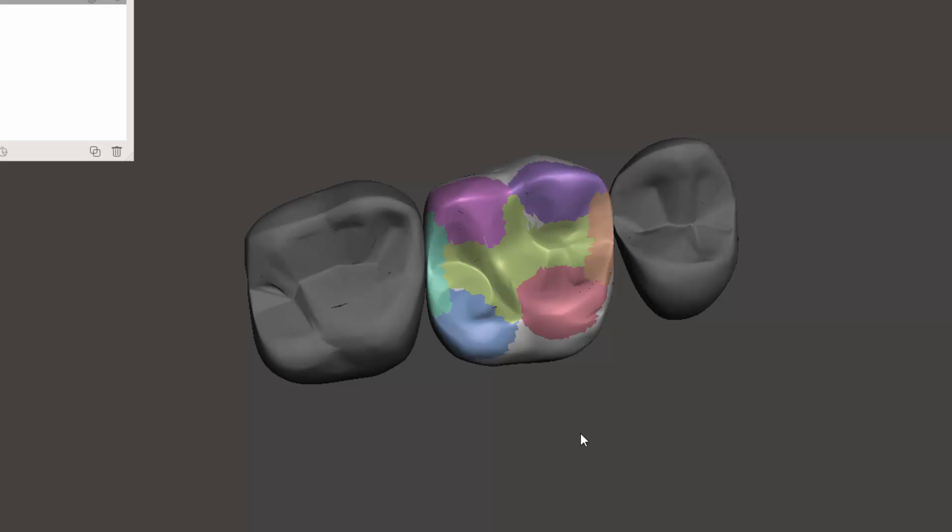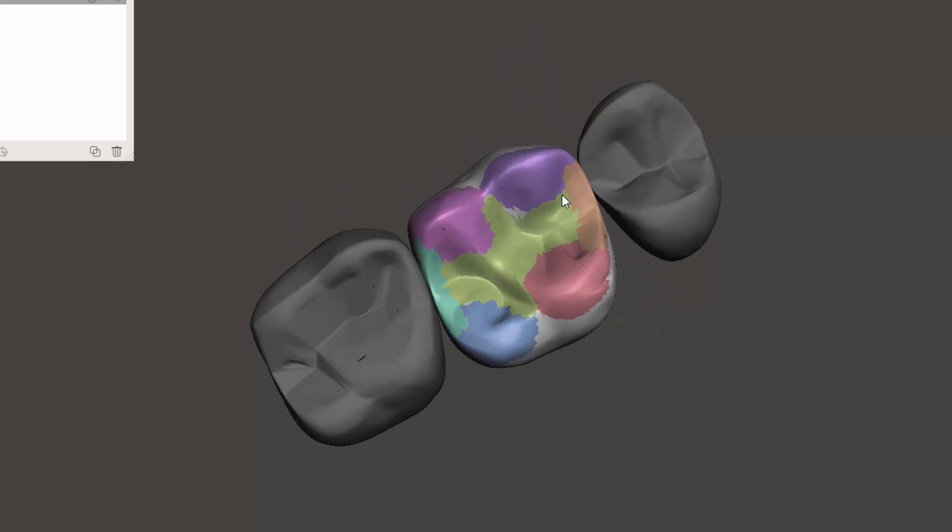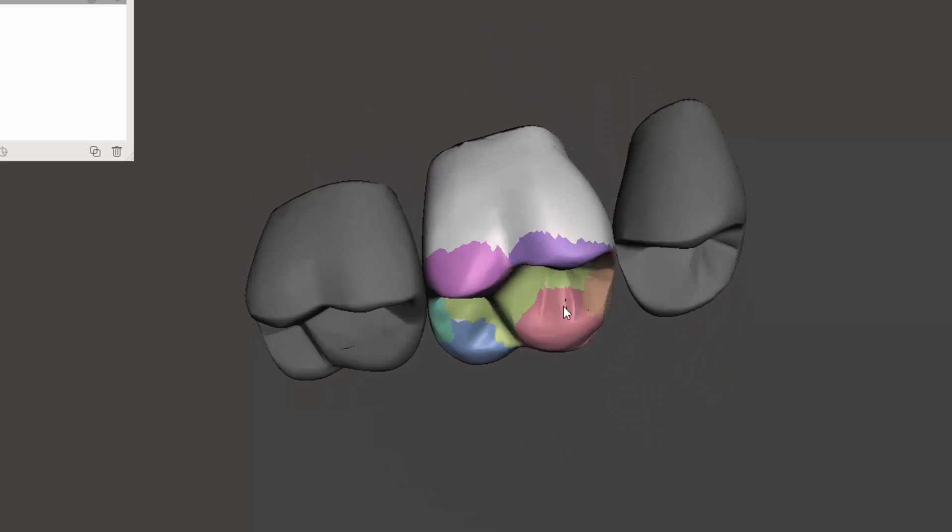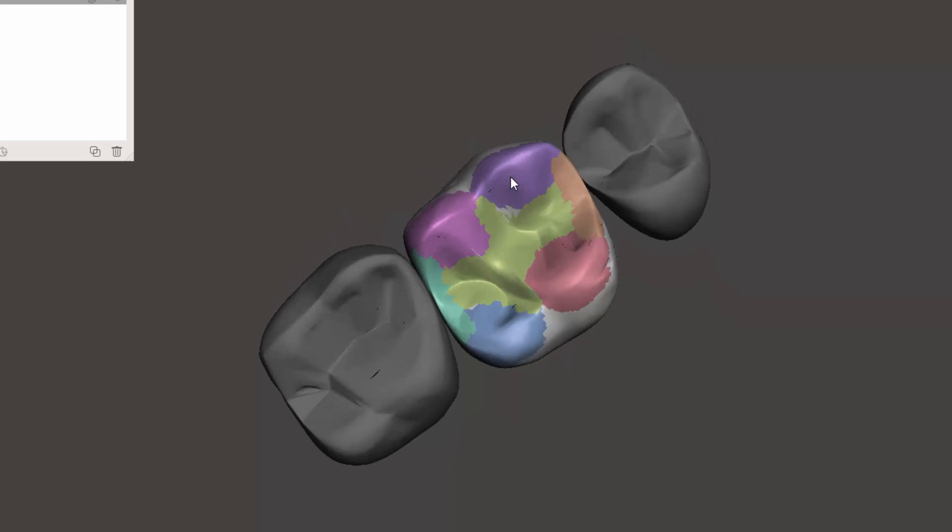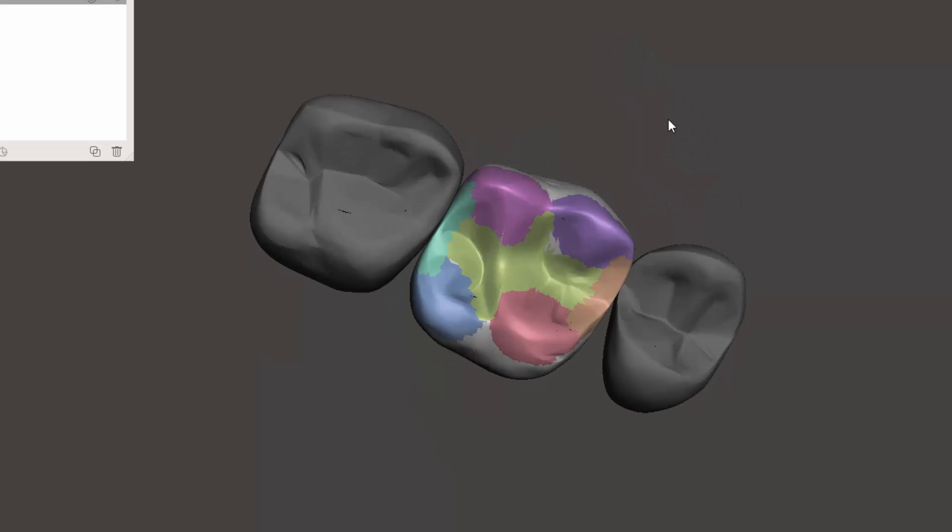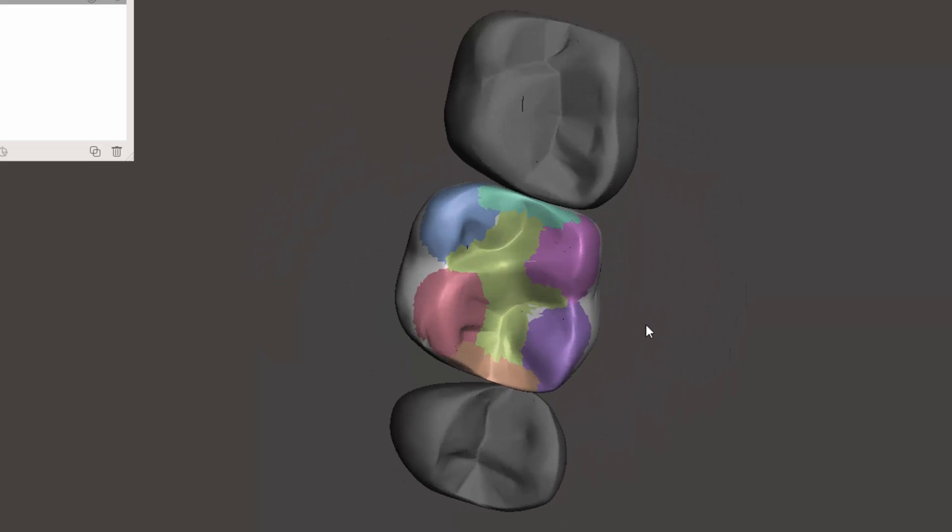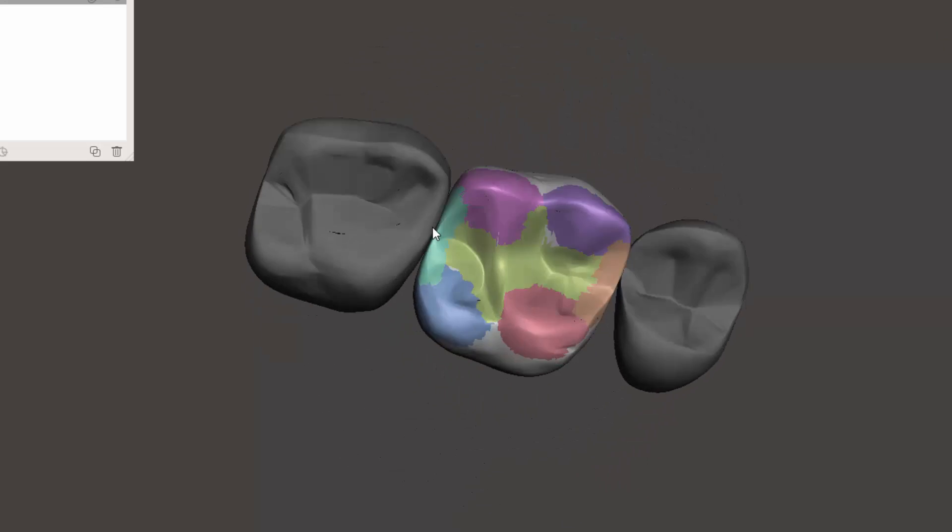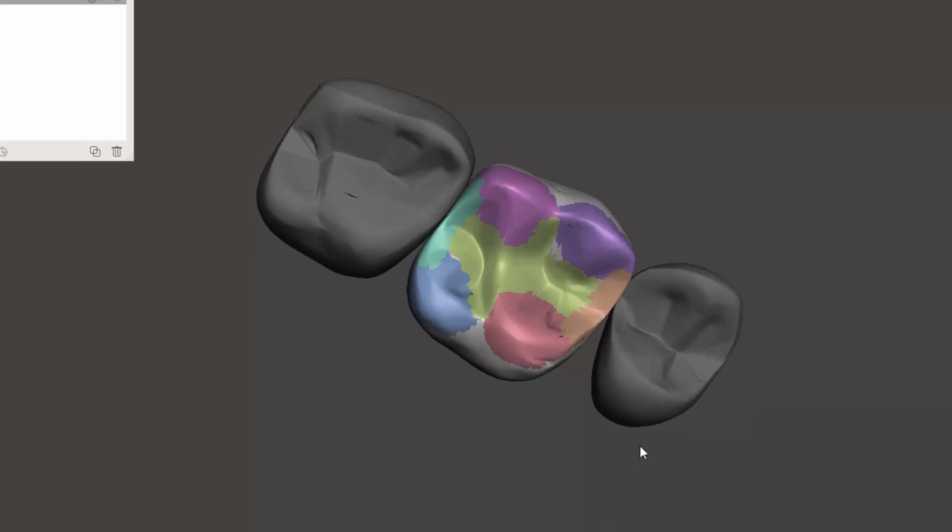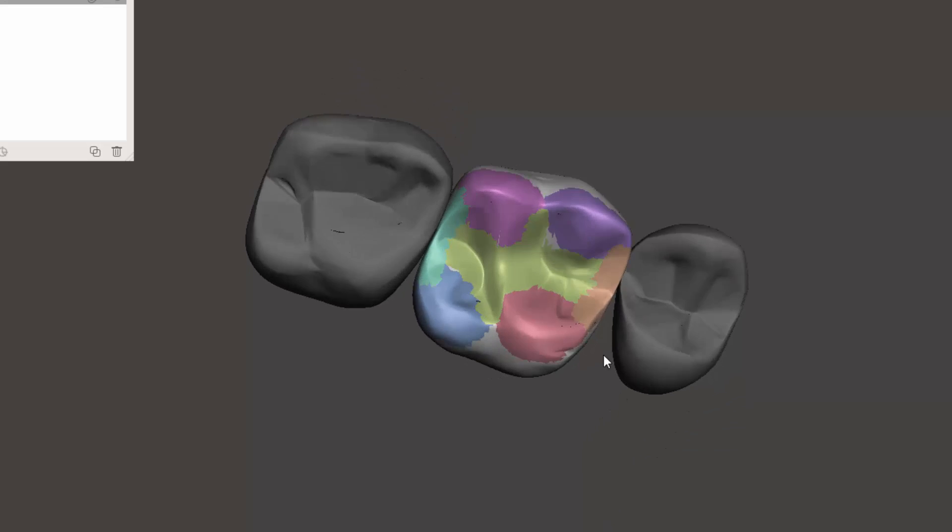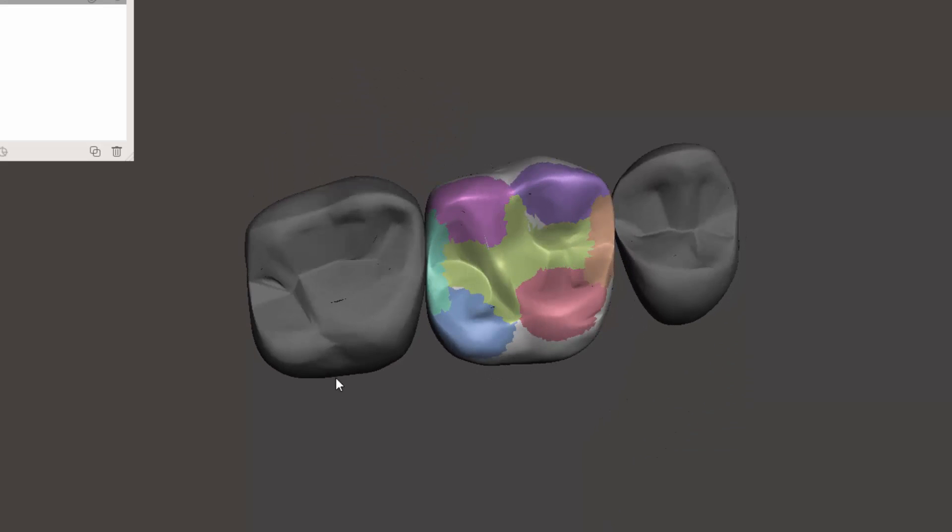I don't know if that's anyone else, but this kind of reminds me of when I was waxing teeth in dental school and we had to use different waxes for different anatomical features. So anyway, this would be an example. Now we've got this tooth sectioned out by anatomical landmarks.